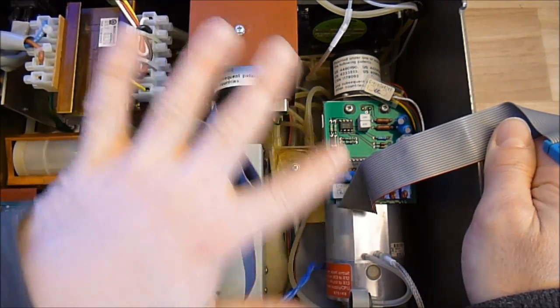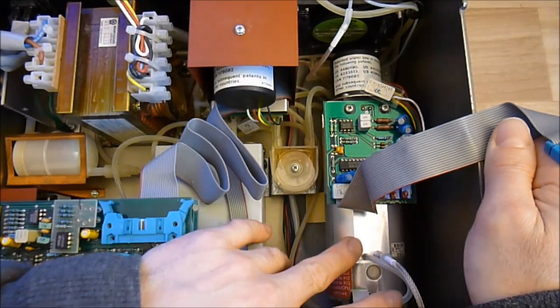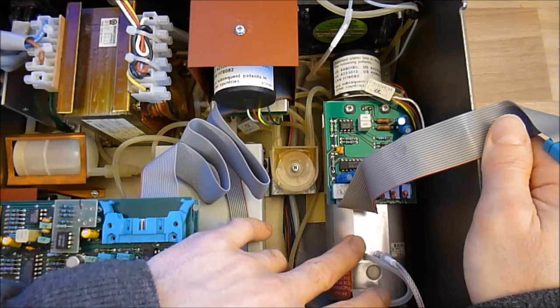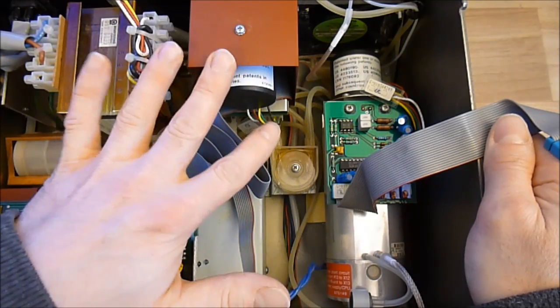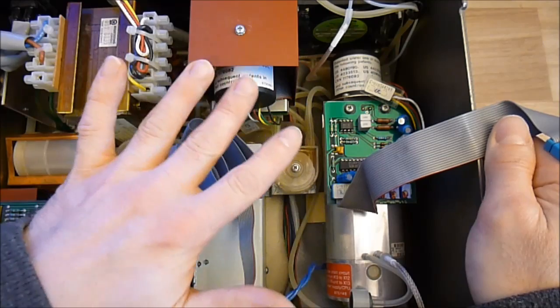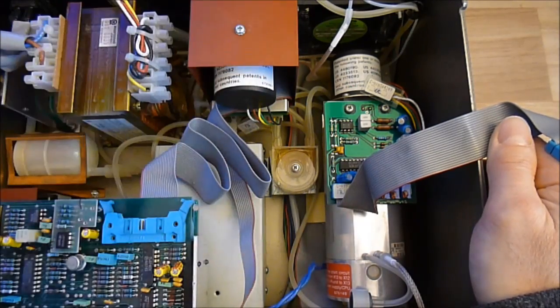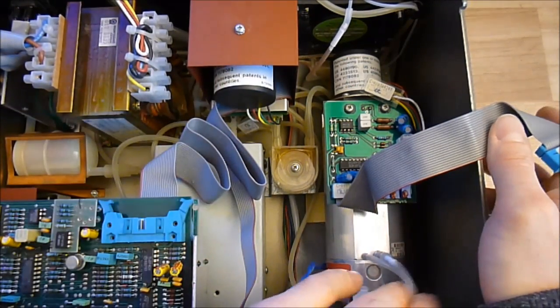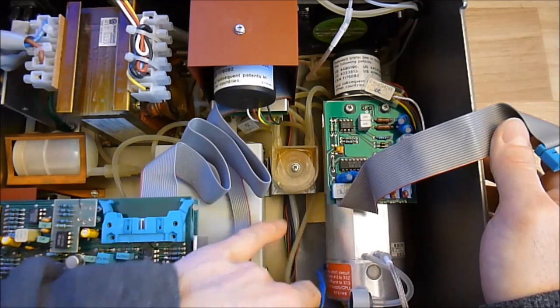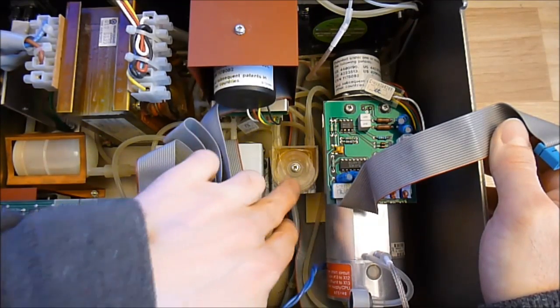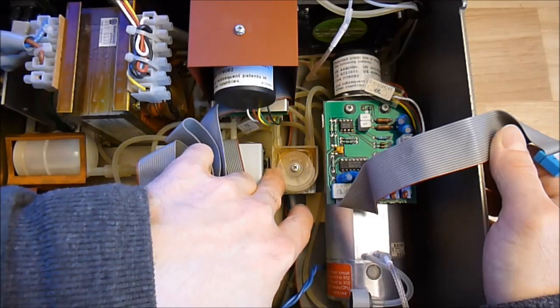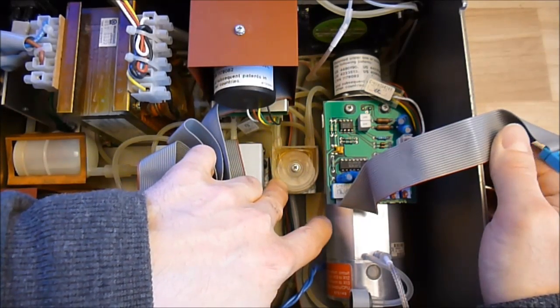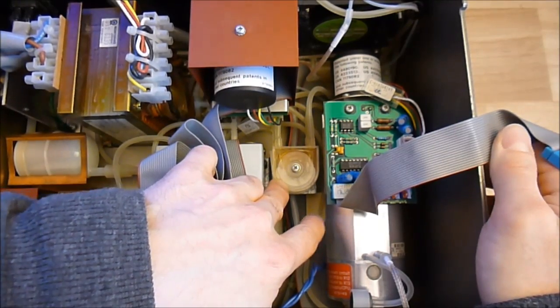The two others, there is one for CO2 and N2O, and one other for the anesthesia gases, but I cannot tell now which one it is. So you can see all the nice air tubing with stuff here I do not know exactly what it does, because I know there are some dampening chambers.